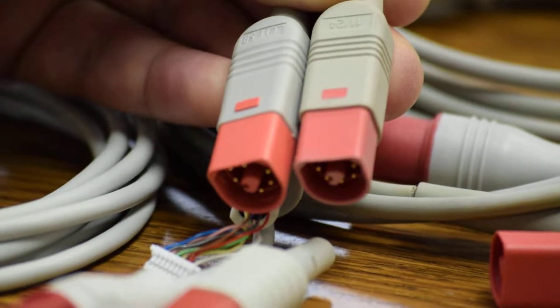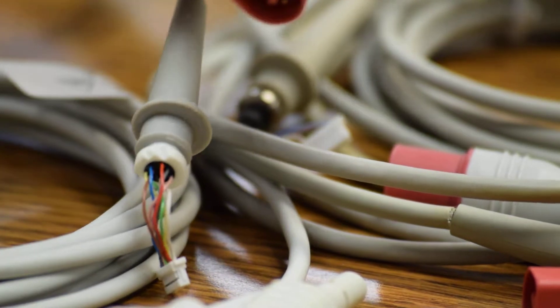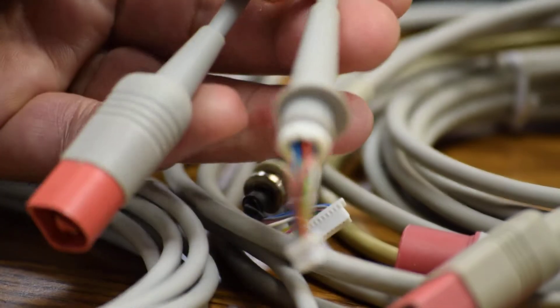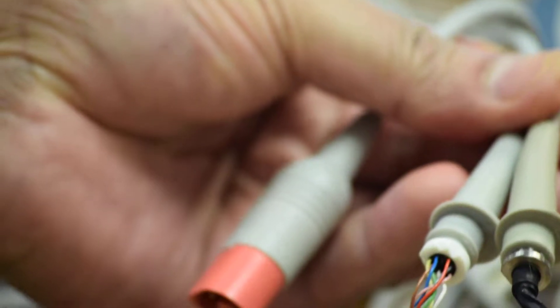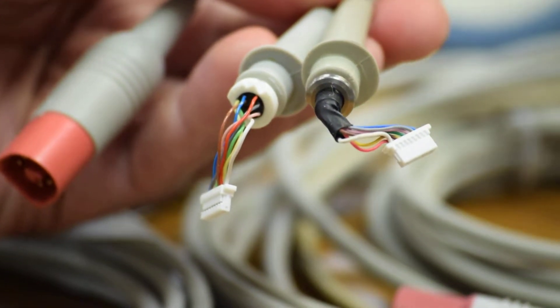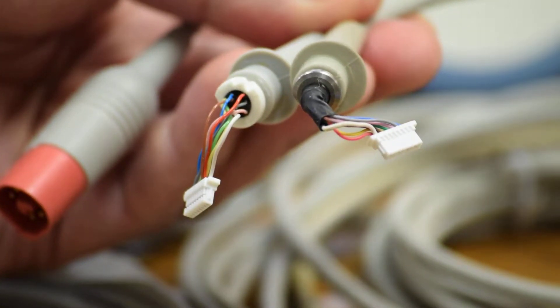On the other side of these cables: the original connector's strain relief has plastic inserts, whereas the third-party strain relief has a metal insert with heat shrink just after the connector.